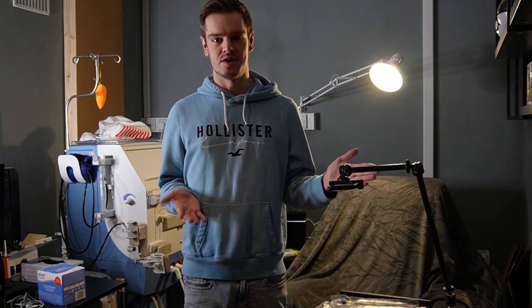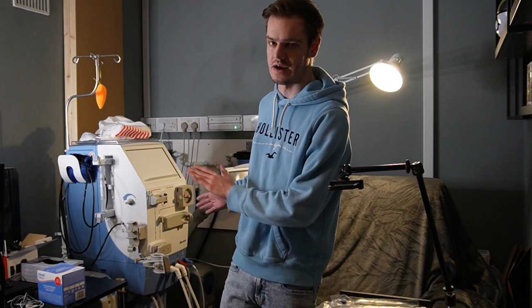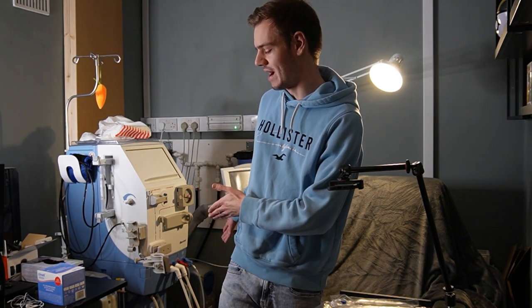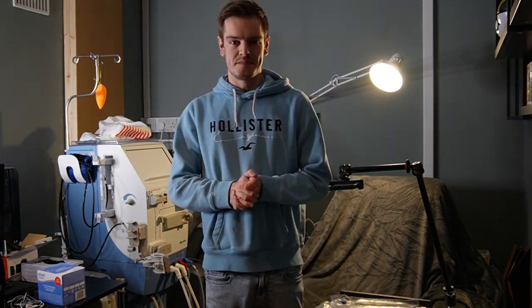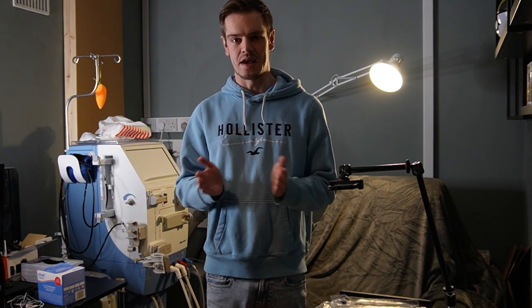So the plan is to try, if it all goes well, show you the whole process properly. I've got a second camera here, which is my phone, showing you all the stuff that's involved in getting dialysis ready from home, all the equipment on my trolley, and I'm going to try and show you as much as I can from the limited space I've got. So I guess the best thing to do is to get on with it, so let's get going.